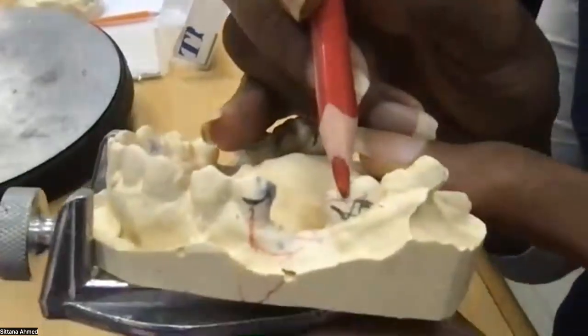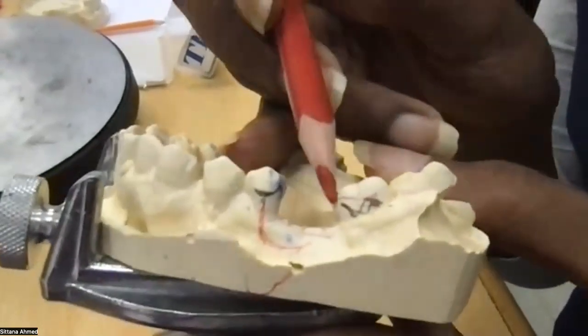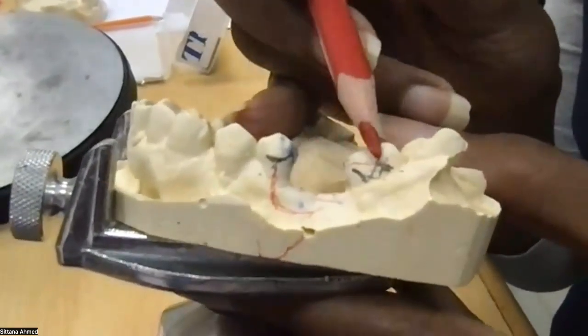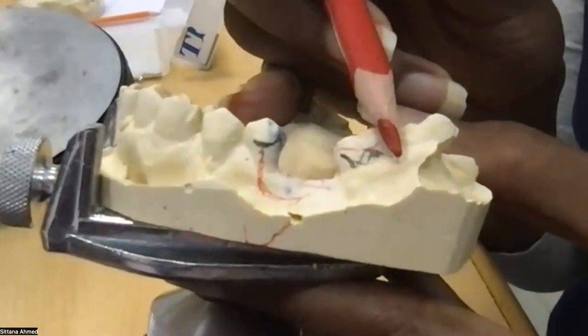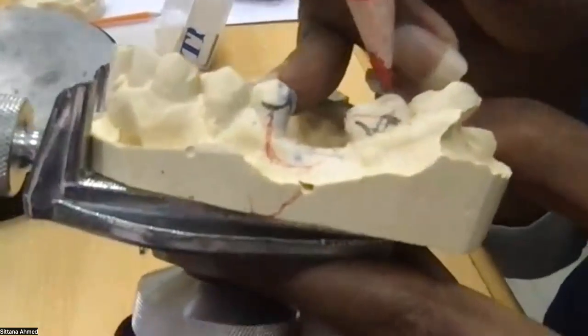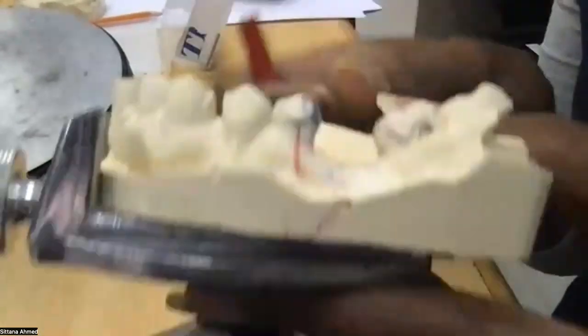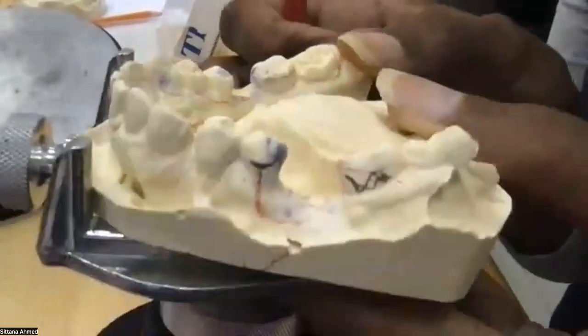This one here, I decided it is a C clasp. So it's completely above the survey line. The survey line is very low. The black one is the survey line. So it will not work. Either I make a dimple here or I make a little bit of change. The change in the tilt will be, this time, to the right, left side.